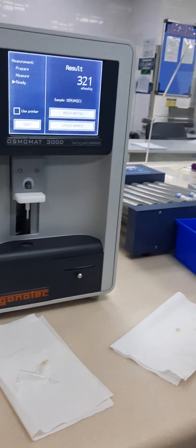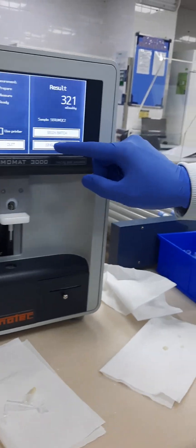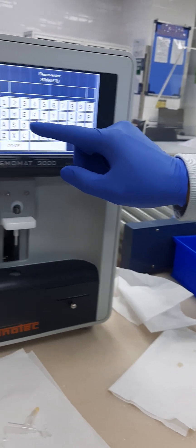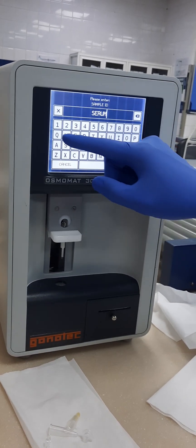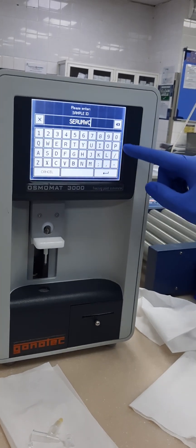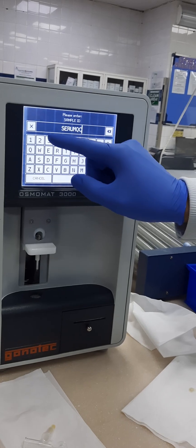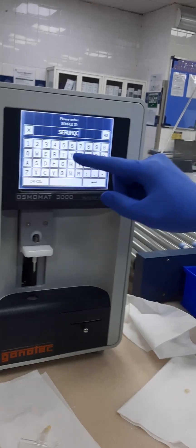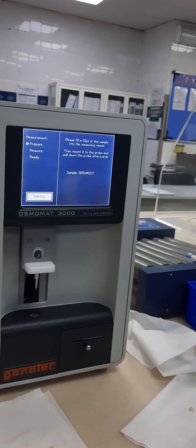Again, you will clean this one. Then same — single sample. So I will make serum. Level three, this one. Okay, this is the one. But then this is the sample.